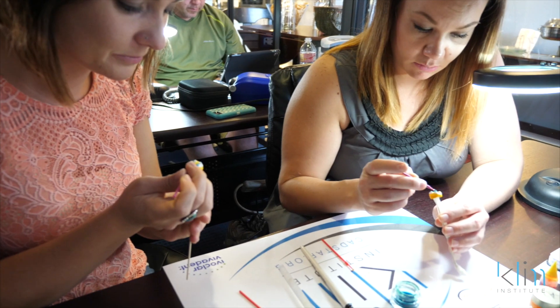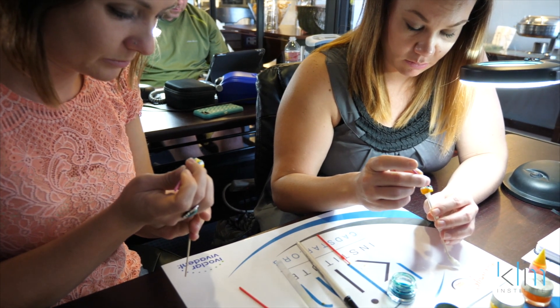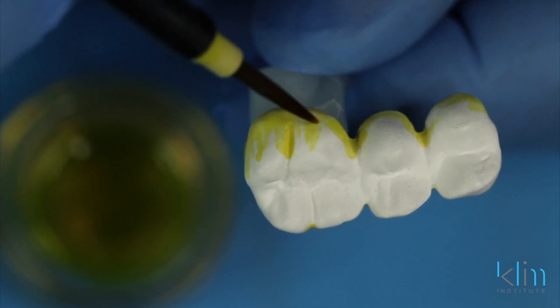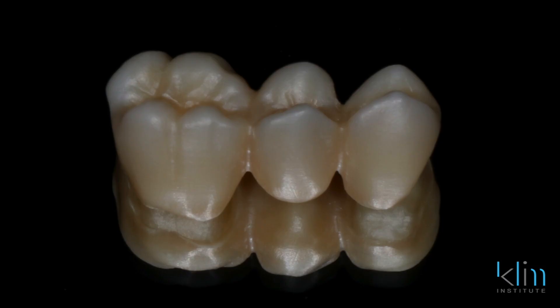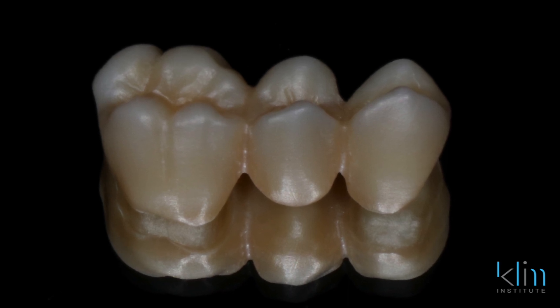This system is not hard to use. I've trained quite a number of doctors and dental assistants and they all hit home runs. You're going to have to spend some time getting used to how to apply these coloring liquids — it's almost like watercoloring. The more applications that we place on a given area of a restoration, the chroma will become more intense, which means it's more saturated.